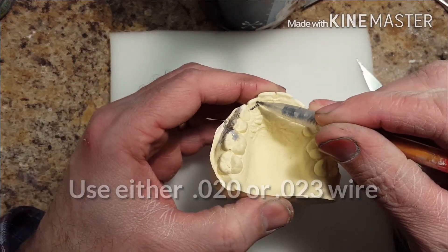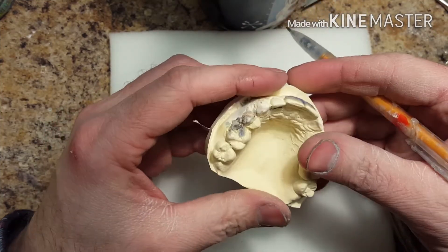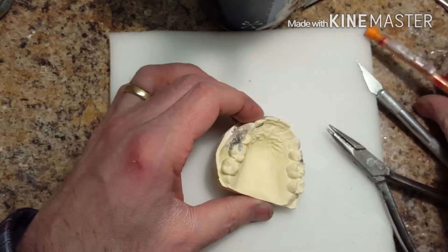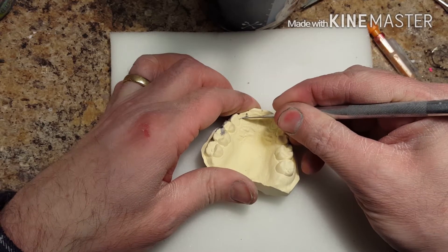It's a great little spring that you can bring a tooth mesial or distal and push it out just a little bit. These are basically for kids who didn't wear the retainer, or the doctor just wants to do a little finishing touch.